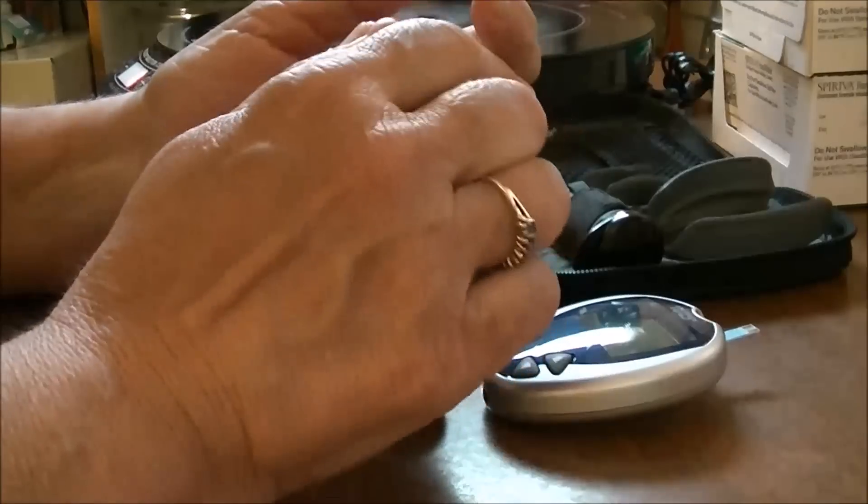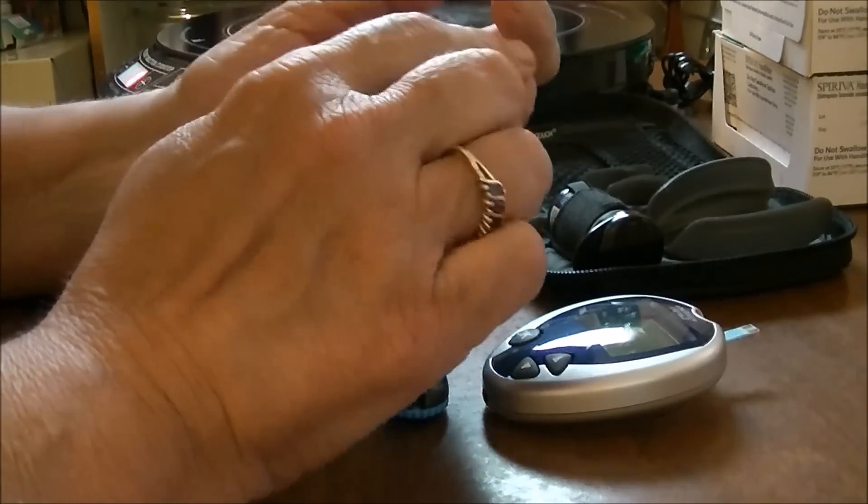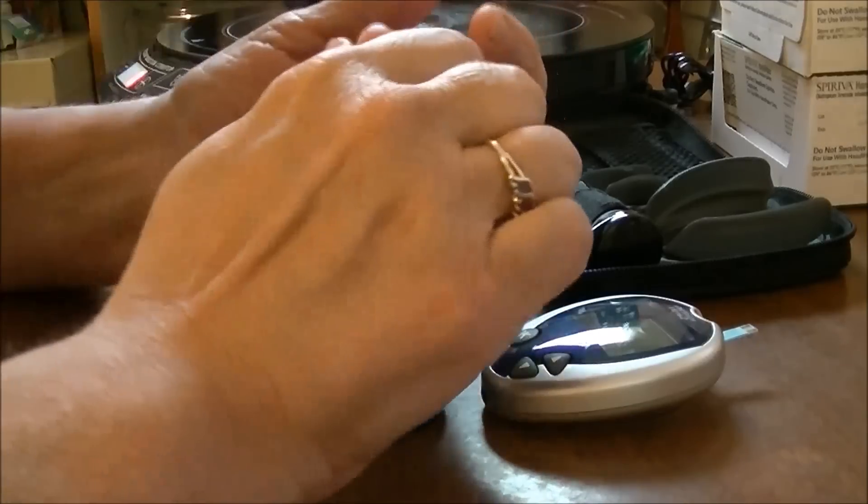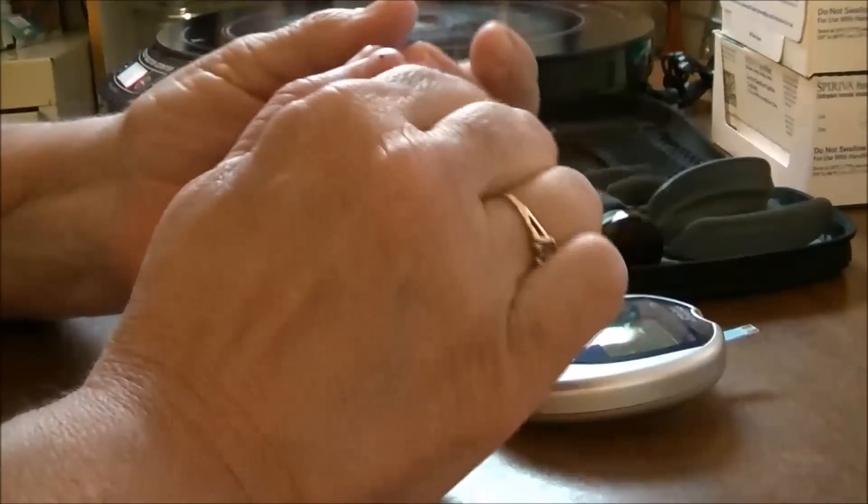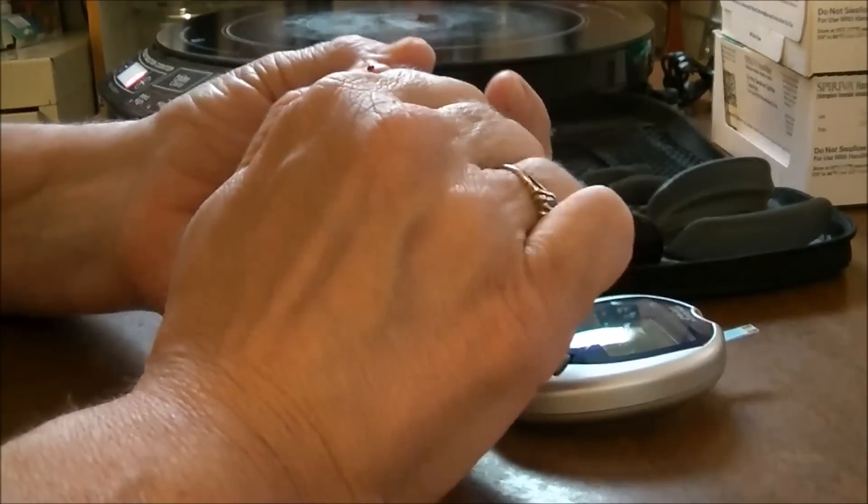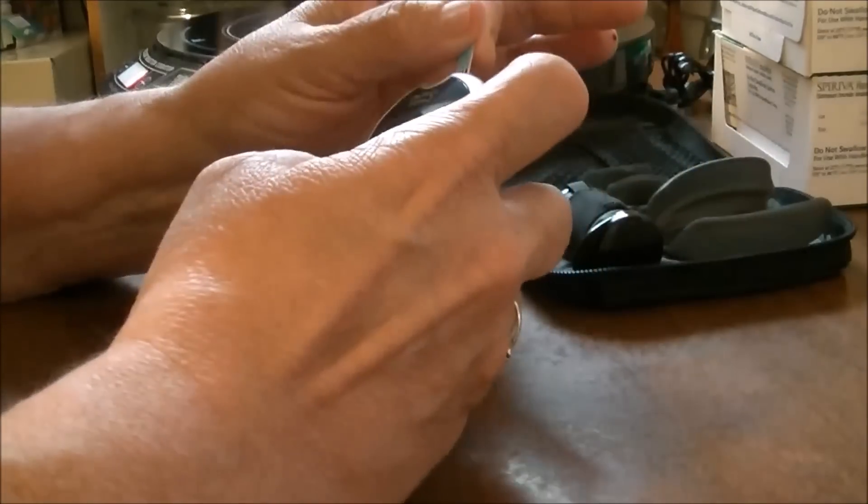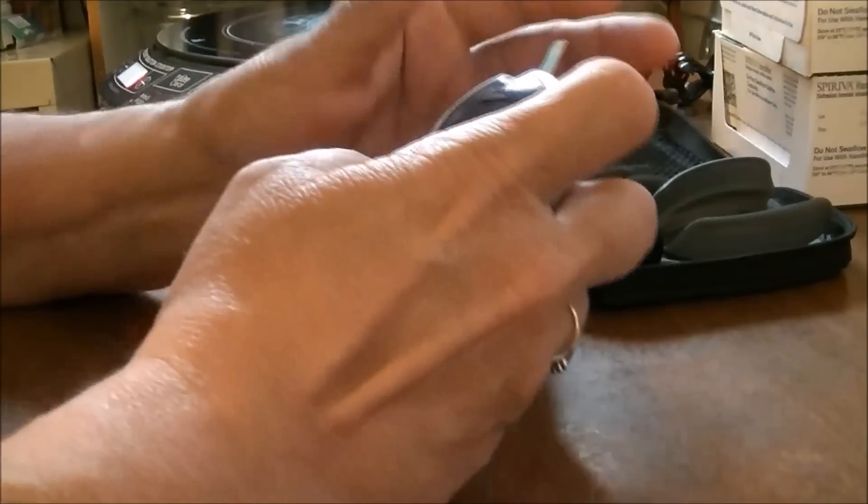It doesn't hurt. Now whether I got blood that time - nope, no blood. Just a little bitty drop. I guess I could... yep, there it comes. They always did this at the doctor's office, so I guess it really doesn't make any difference. But I gotta take this out and put it back in because it went off.